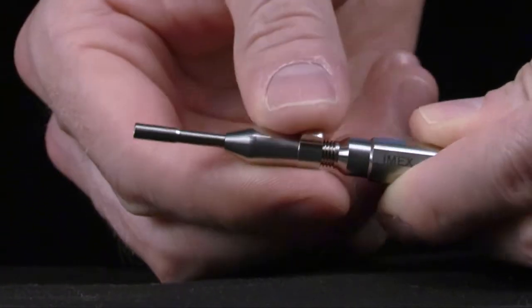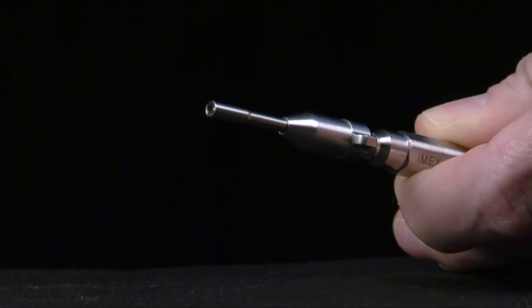Hex drivers can also be inserted in the finger driver for the purpose of implant removal or screw tightening.